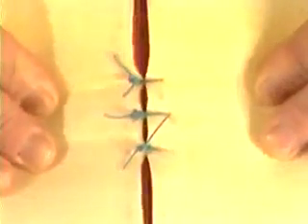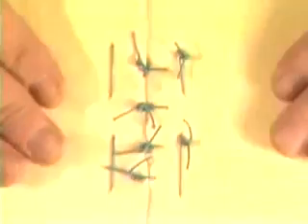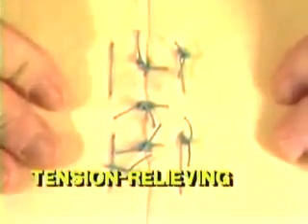Third, everting, turning tissue edges outward toward the surgeon. Or fourth, tension relieving. In this model, a non-tension relieving suture gaps when pressure is placed on the tissue. In this model, note how the addition of a tension relieving suture has removed the tension forces from the wound.